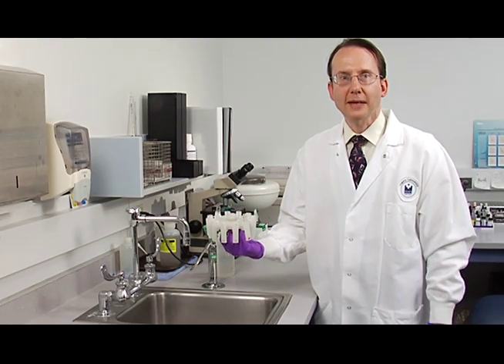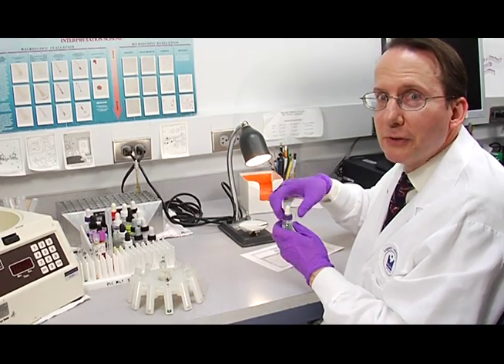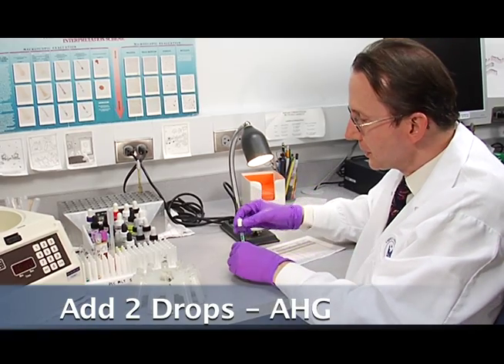And now we'll take the tubes over and add two drops of AHG to each tube. The next step is to add two drops of AHG to each of your tubes.